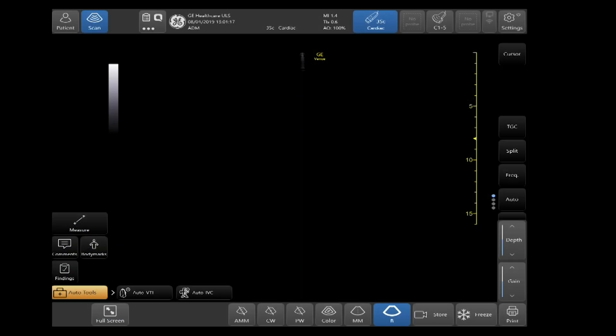In the upper right hand corner, go ahead and tap on the second icon in. It is your networking icon.